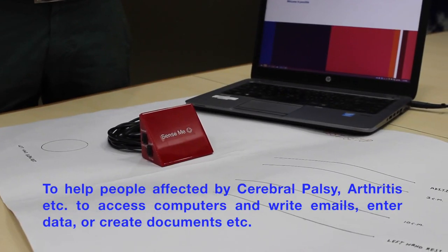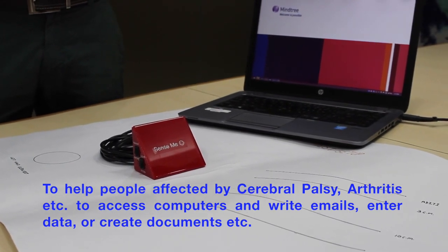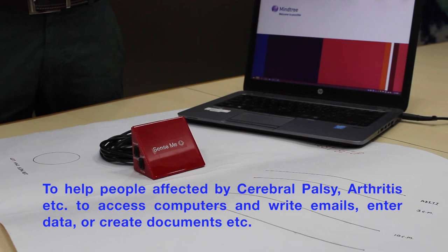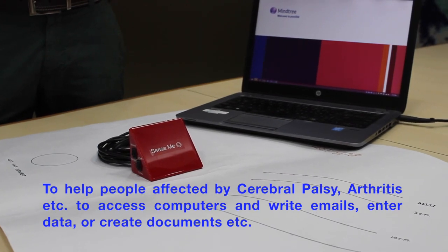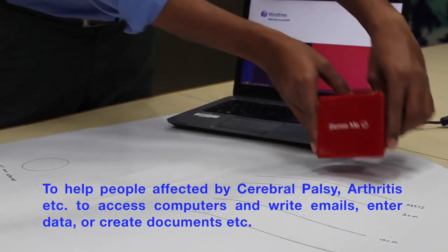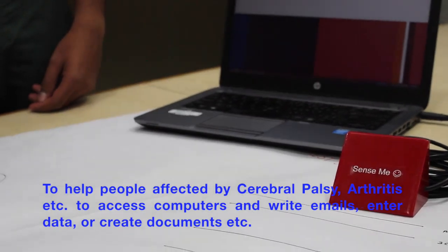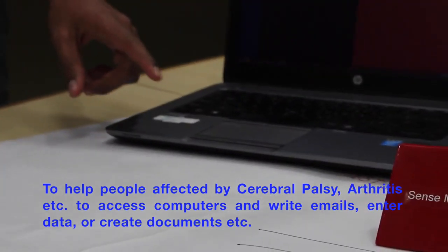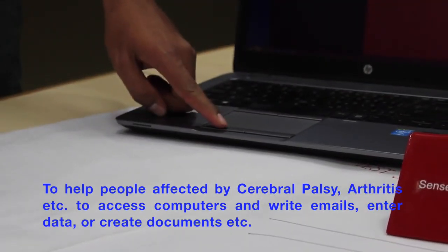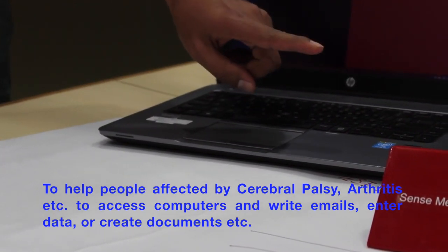Aditi will help people with severe musculoskeletal disorders such as cerebral palsy, arthritis, etc., to interact with computers more easily, which will enable them to enter data, to write emails, and to create documents, thereby opening up a new world for them. Aditi generates only the left click of the mouse device and it does not generate a right click or control the cursor.